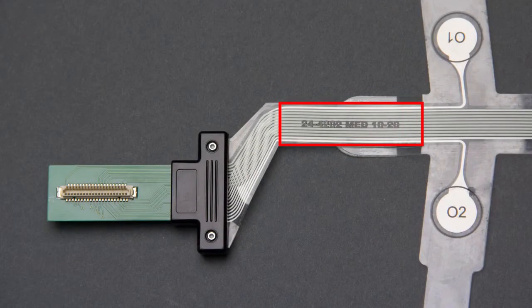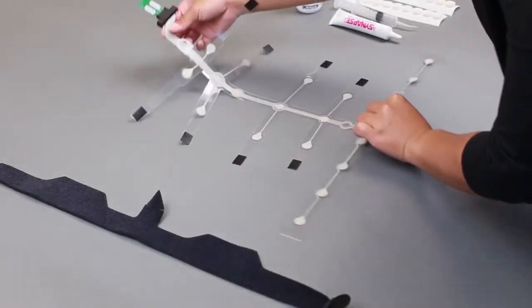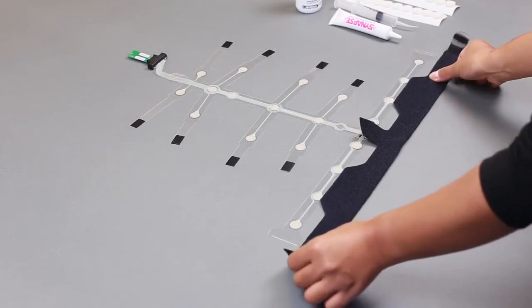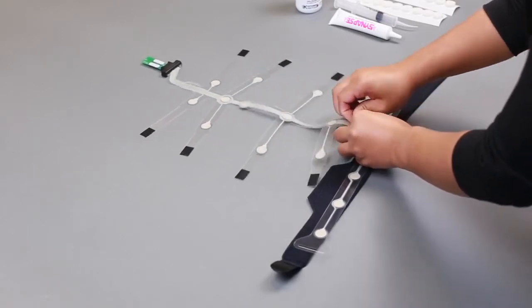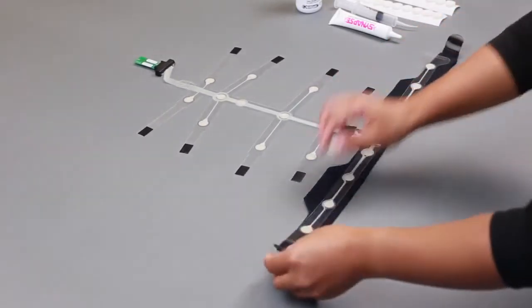Size is indicated near the connector on the labeled side of the strip. Check the strip for any damages including creases, tears, or excessive wear from previous use. These types of damages will not immediately affect data quality, but should be noted so replacement strips can be ordered before your current strips begin to fail. Lay the selected strip on a flat surface so that the labeling is not seen and the sensor pads are exposed. First, attach the neoprene head strap to the sensor strip. Place the head strap with the looped or fuzzy side of the strap facing down. With the strip still facing upside down, carefully feed the triangular tip on the strap through the hole on the front of the strip. Center the strip and firmly press down the Velcro to set its position.